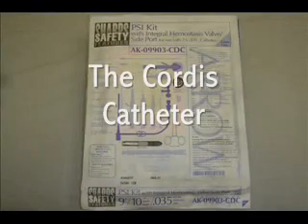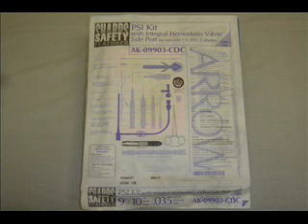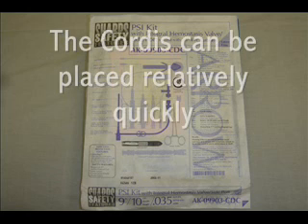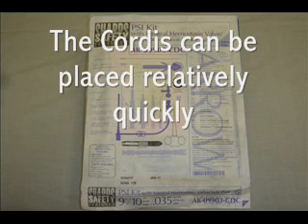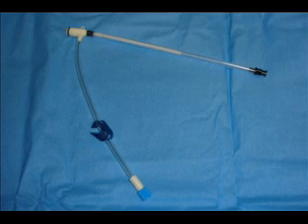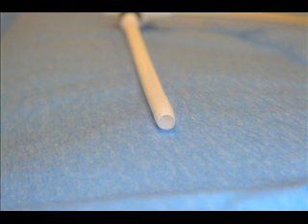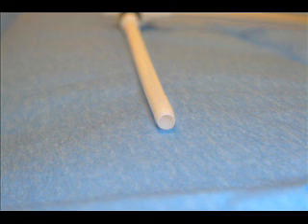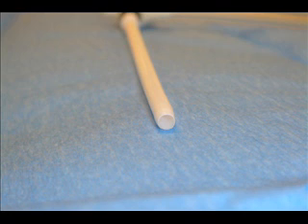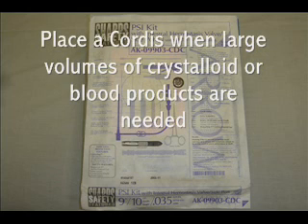The cordis catheter, pictured here, should be your go-to line in emergency medicine for a couple of reasons. First, compared to the triple lumen catheter, the cordis can be placed in almost half the time. In addition to being very quickly placed, you can also infuse very large amounts of fluids in short periods of time through the cordis catheter. Because the catheter is so short and fat and only has one lumen, you can actually infuse up to a liter of normal saline or lactated Ringer's as quickly as one minute with the proper equipment.